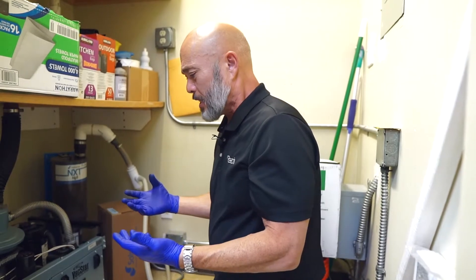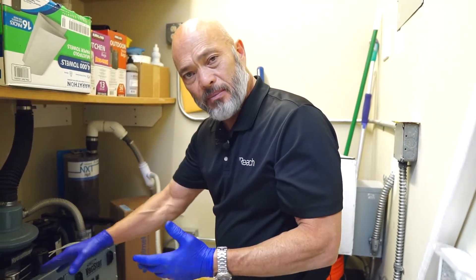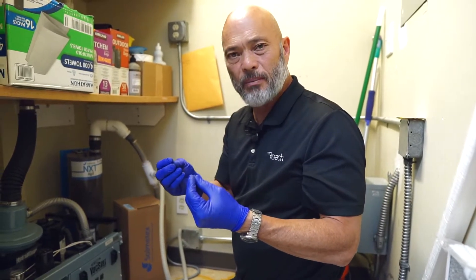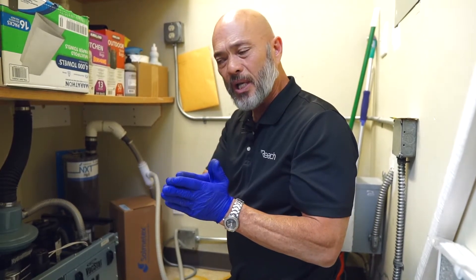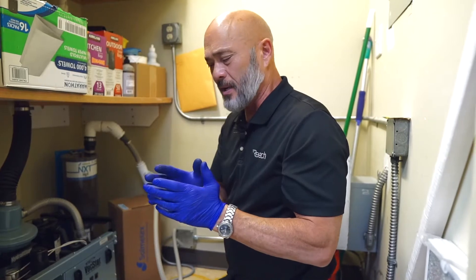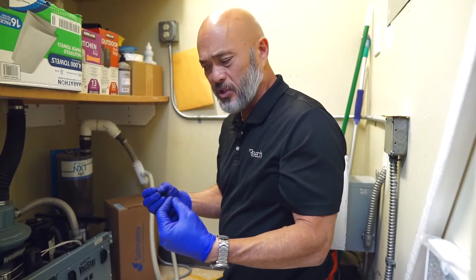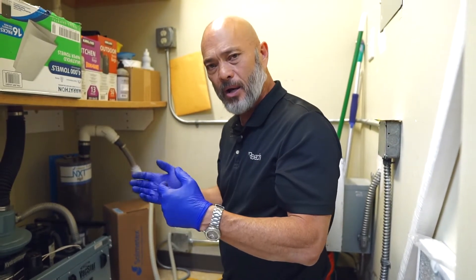Maintenance of the vacuum pump: you want to come in and check on a regular basis the gauge, to make sure that your gauge is working. The average pressure — we call it inches of mercury; there is no mercury in it, but that's an old way of gauging it and they still use that term. The inches on your gauge should be around 10 or 12. If it's any higher or lower, talk to your Reach technician and they can adjust that or find out why.